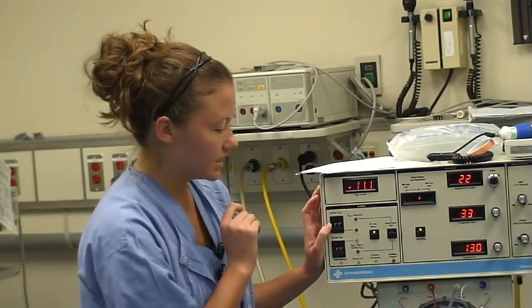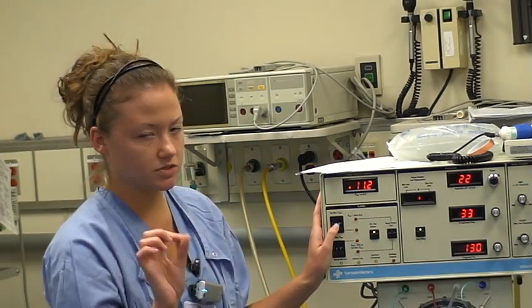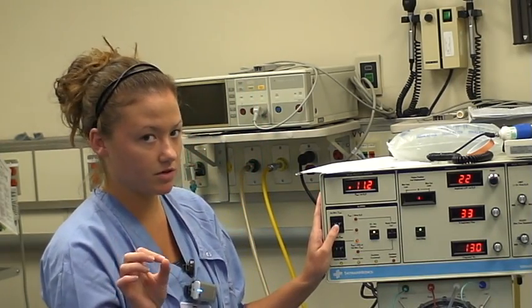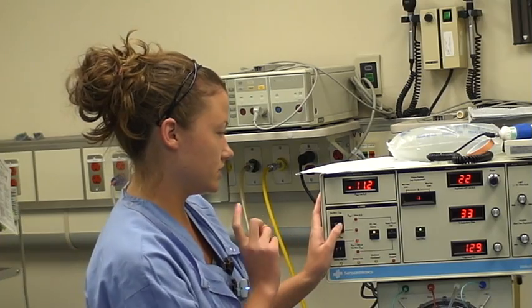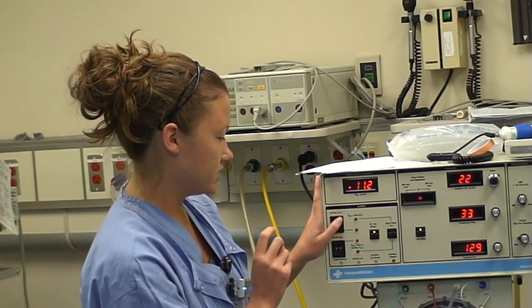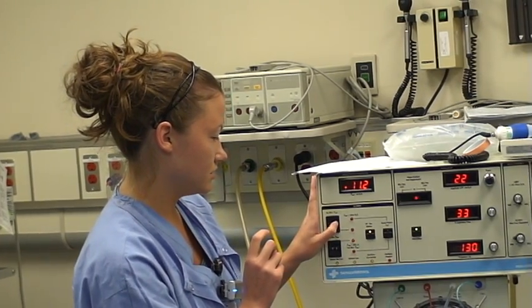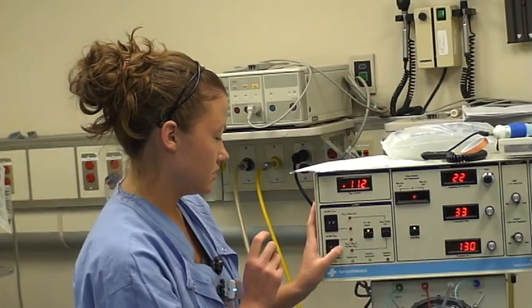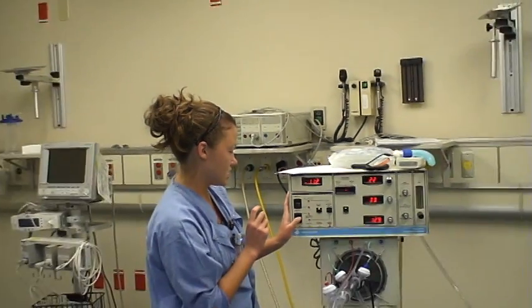The next thing you're going to set is your alarms — three above and three below the mean airway pressure. So if you're set at 11, you're going to want the alarms set at 14 and 8.